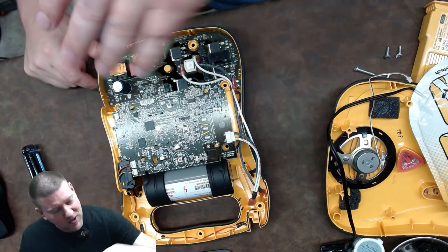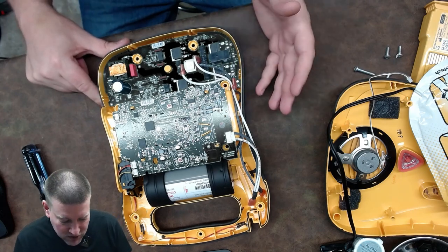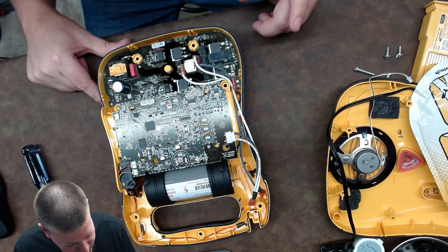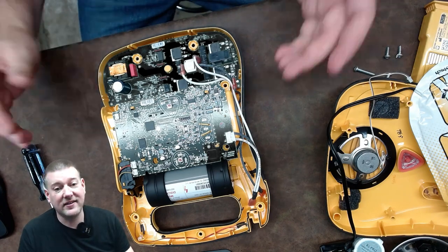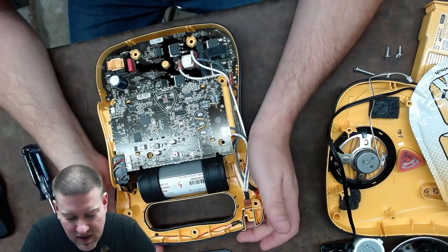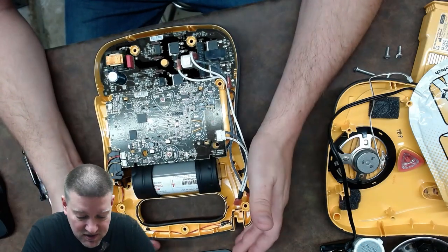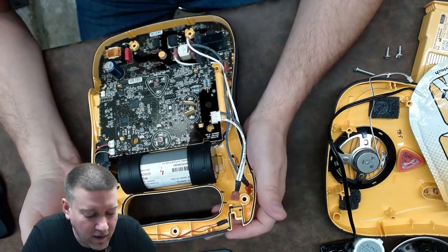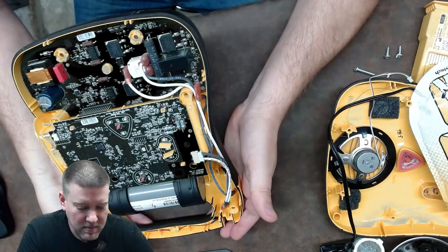Static electricity is tens of thousands of volts but very few amps. This device delivers some amps, and it is definitely high voltage — it says so right on the board. I'd love to find more documentation on that. The capacitors in most units are normally exposed, but this one is hermetically sealed, so it's a pretty safe unit to open up. I'll probably be donating this unit to a college so future biomed students can open it up and learn something.